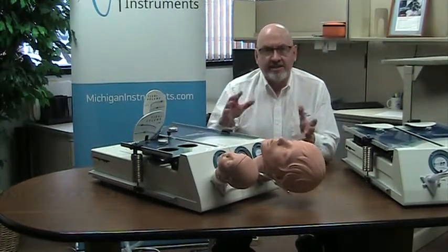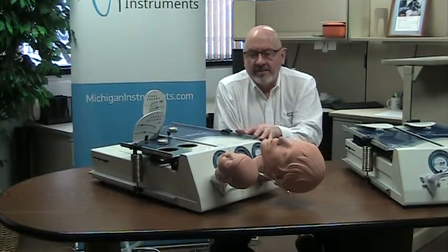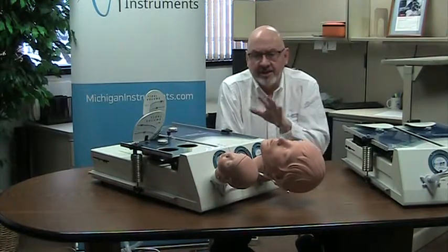This expands the range of simulations from infant to pediatric to adult, all in one single unit that you can have on your benchtop.